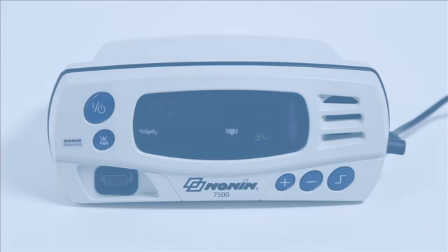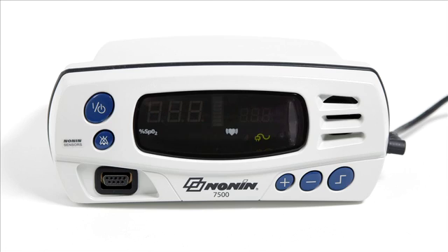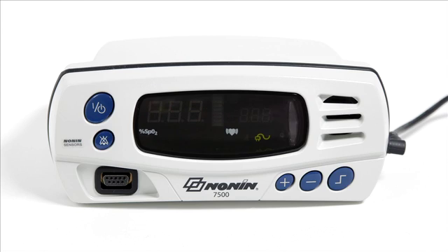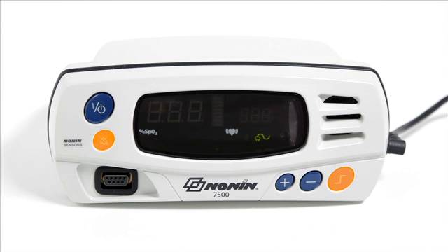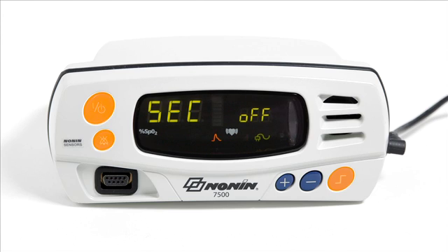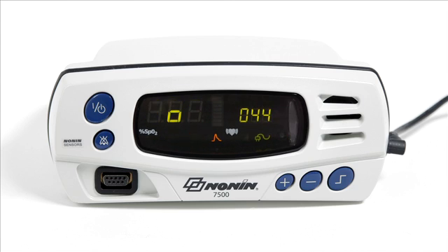To enter setup mode, start with the oximeter turned on and patient security mode disabled. To disable patient security mode, press and hold the alarm silence and limits button, and then press the on-off button when turning the oximeter on. You will see SEC OFF appear on the screen momentarily during startup.